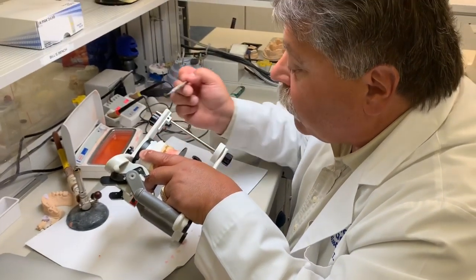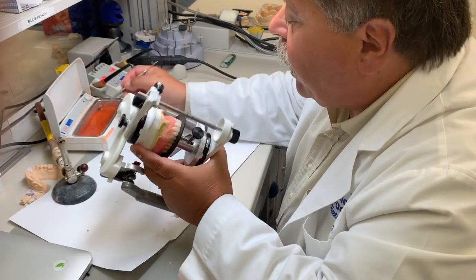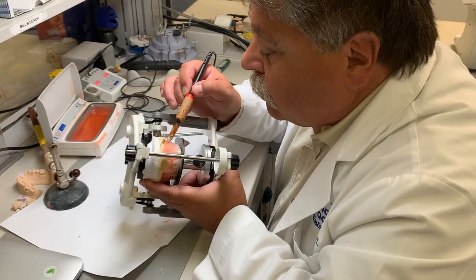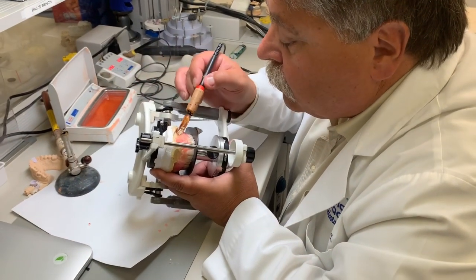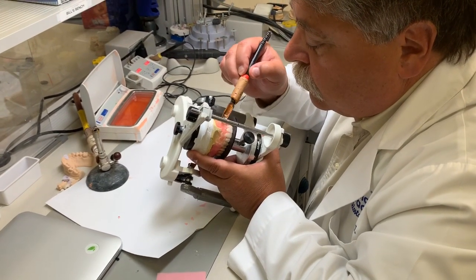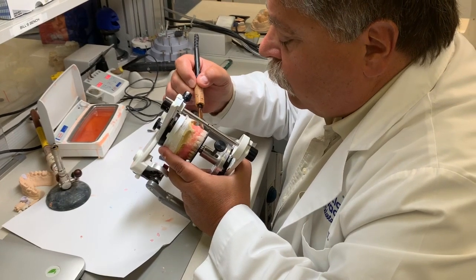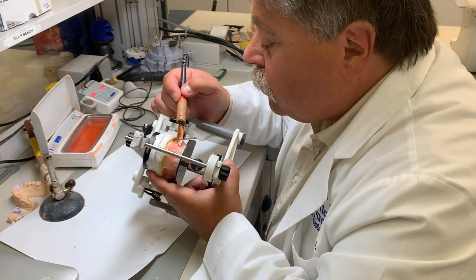This is the process that takes a little bit longer because we need to add a lot of wax to make it look good. So both tops and bottoms separately take about 45 minutes apiece each. No, we can do an upper and a lower in just under an hour. Okay. Still a lot of time.